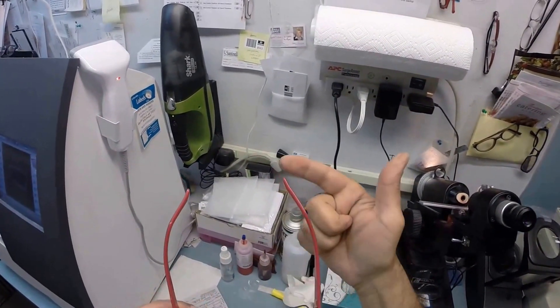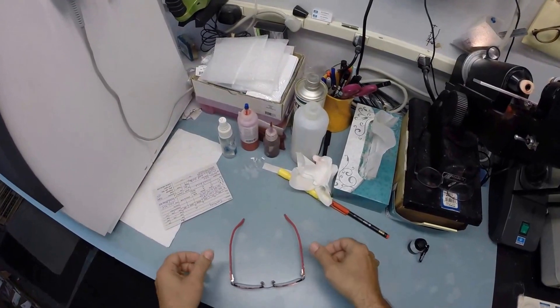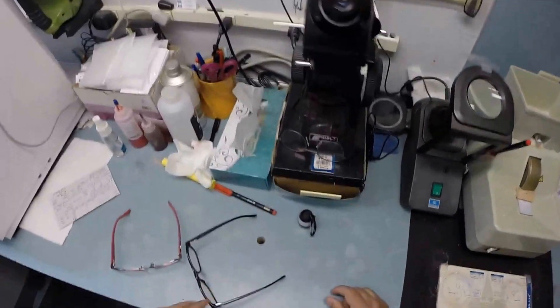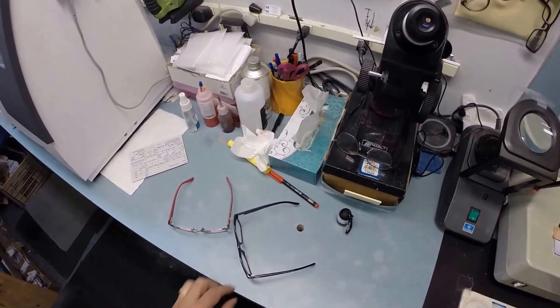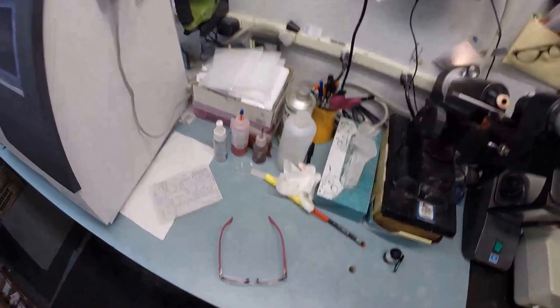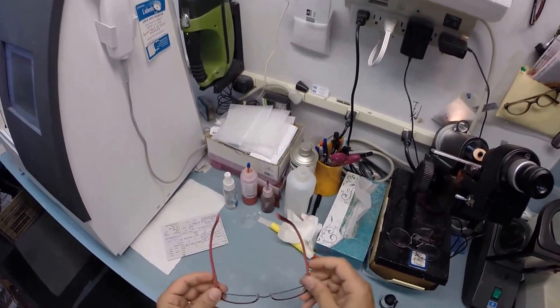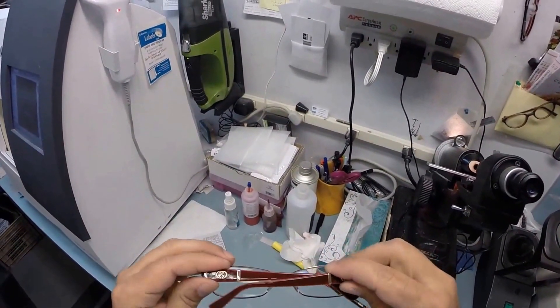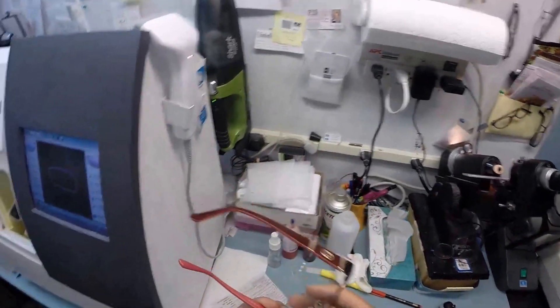But I'm going to get these in standard alignment first, also known as three point stance. The three points are one, two, and the bottom of the frame being three. I set them on the counter and press down. There is no wobble. And when I say wobble, I'm part of that 80%. When I press down on mine, they wobble on the counter, but they sit level on me. Let me put mine back on so I can see what I'm doing, yo. So I flip them over, press down. There is no wobble. Close each temple to make sure they overlap perfectly and they're not askew in any way. Check the tension on each spring hinge. That is perfect.